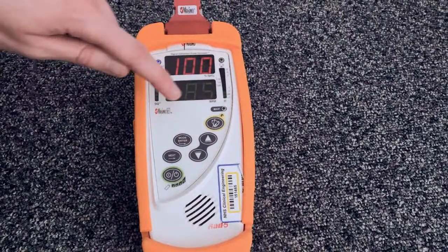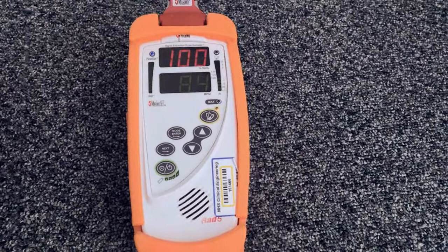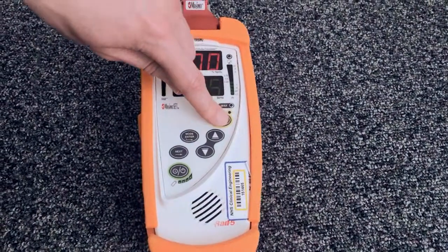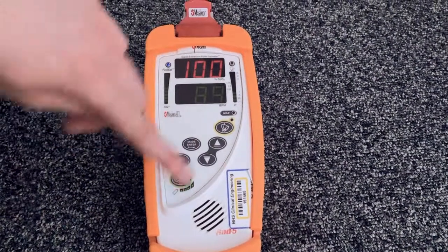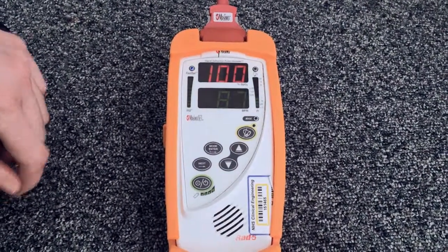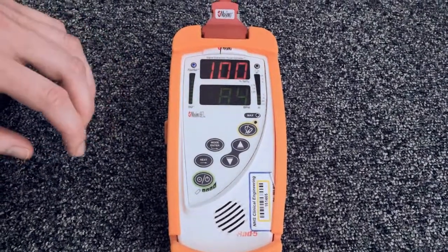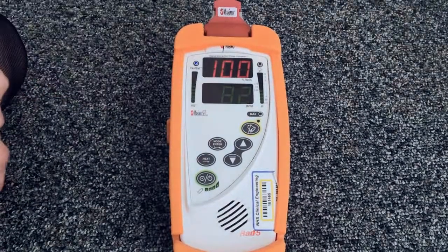If the monitor alarms whilst it is trying to generate a reading and the noise disturbs you, you can press the yellow button with the bell on to silence the alarms. These machines are set up for children with saturations above 90%, so any child or adult placed on this monitor with lower saturations will cause the machine to alarm. In that case, it will be necessary for you to use this button to silence those alarms.